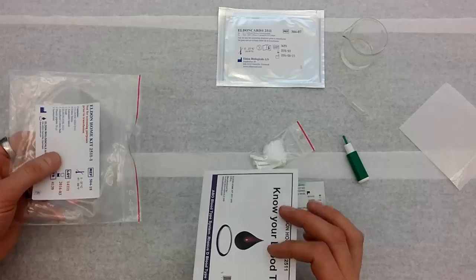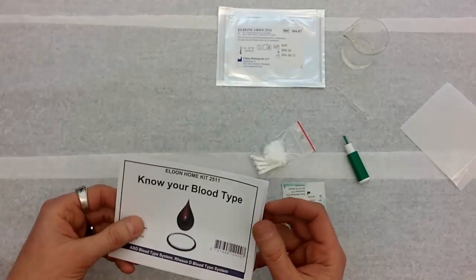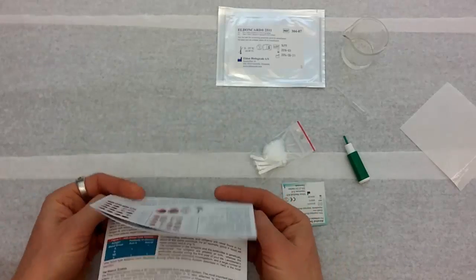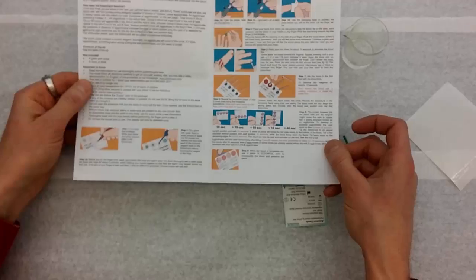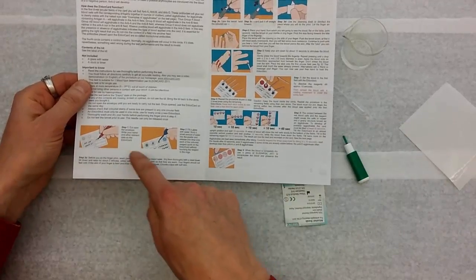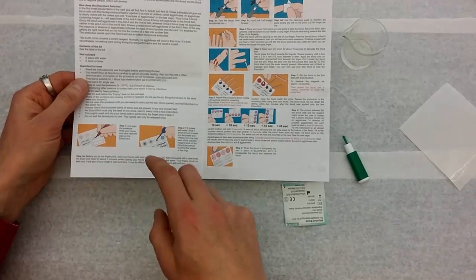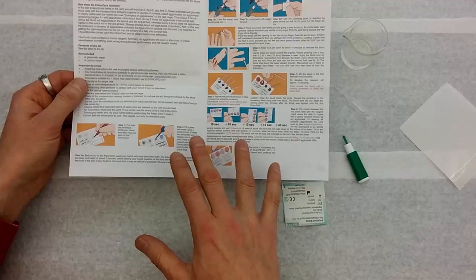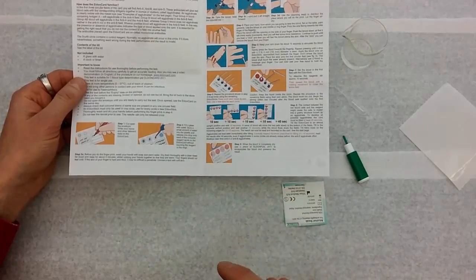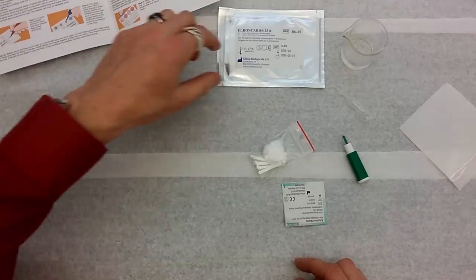This last thing, and I always pull this out last, maybe it's because I'm a guy. If all else fails, read the directions, right? These are the directions on how to do it. I highly recommend reading through these directions. They even got little pictures to help you. But read through them at least twice before you do this in order to help make sure you don't make any mistakes and mess up the test. If you paid for it, then you'll save some money if you make sure you do it right the first time.